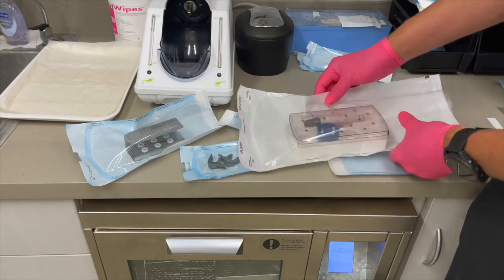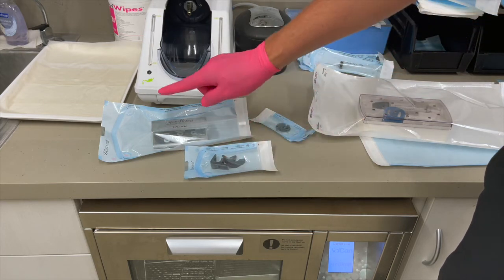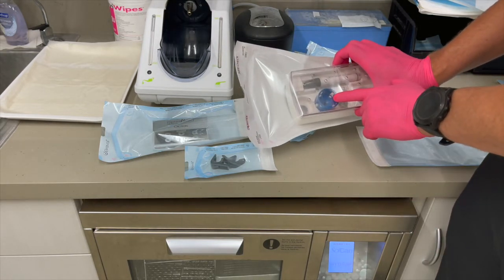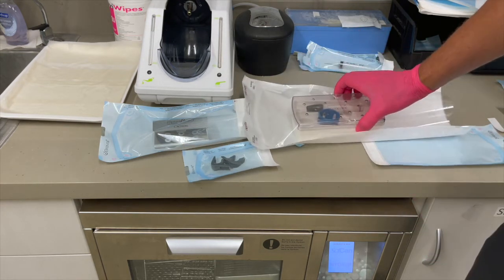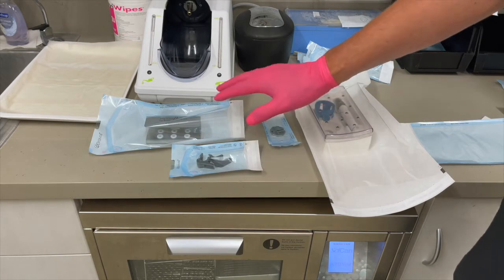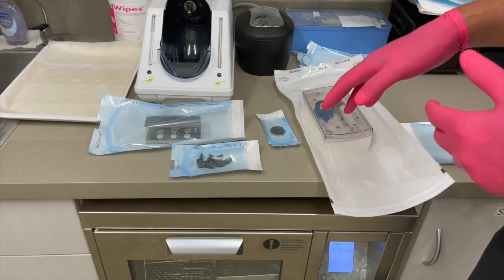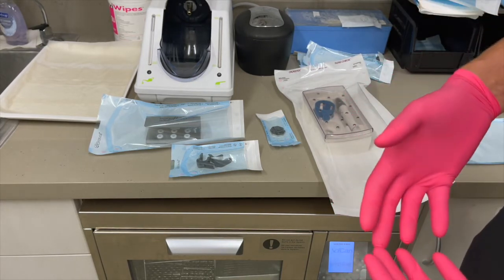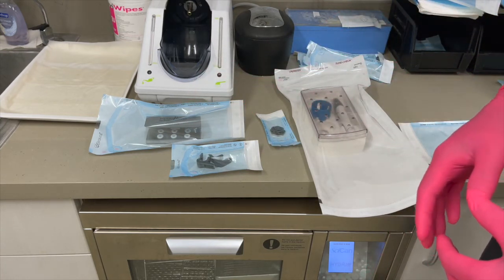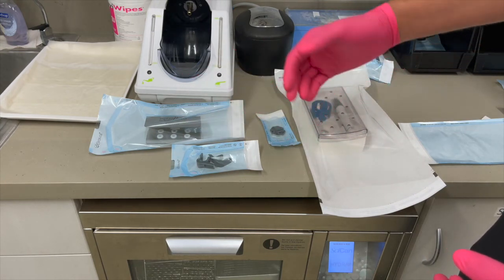Alternatively, you can loosely assemble the items and place them in the cassette, and then the cassette itself can be placed in a large bag and autoclaved. What we have here are the wrench, the holders, the tip kit with your tips, the round wrench with tips, and your handpiece in its pouch. These should all go into either a vacuum autoclave such as a Scican Bravo or a steam pressure autoclave like an M11. A dry heat autoclave or cold sterile method is not recommended — you definitely do not want to submerge these items.